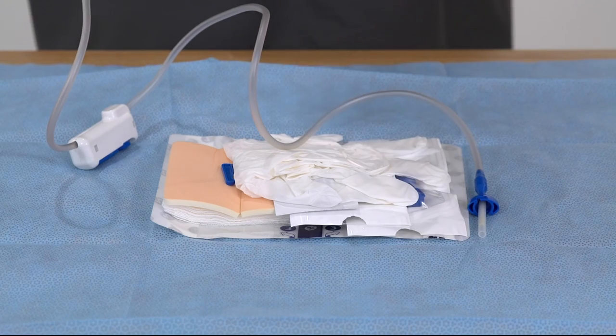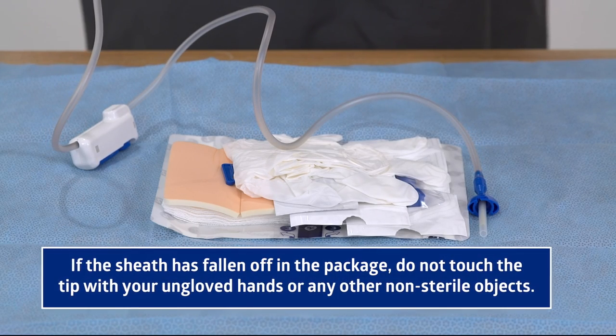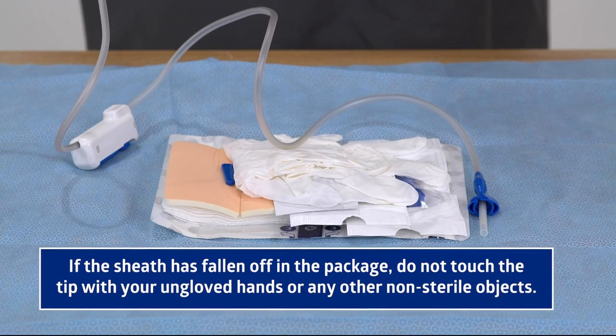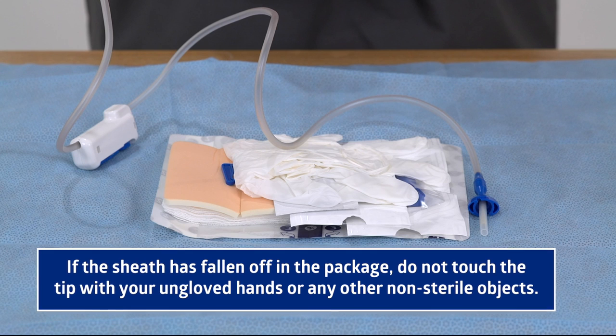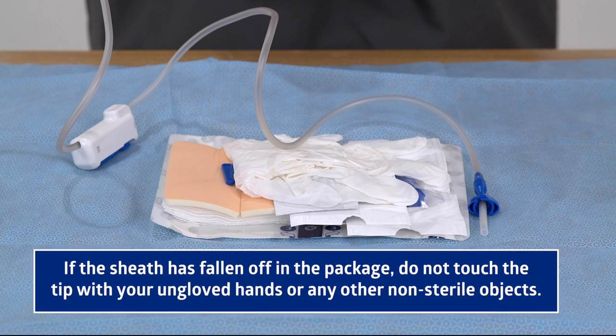If the sheath has fallen off in the package, make sure that you don't touch the tip with your ungloved hands or any other non-sterile objects. It is important that the tip remains sterile.